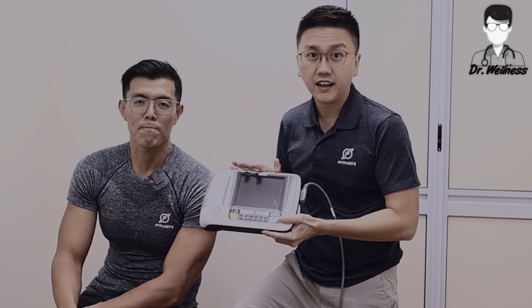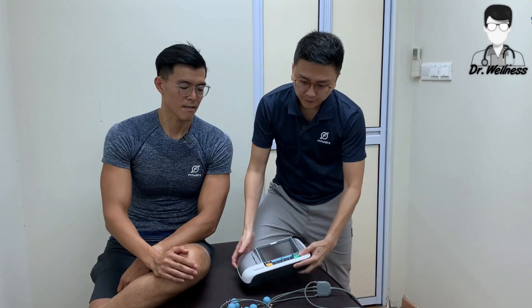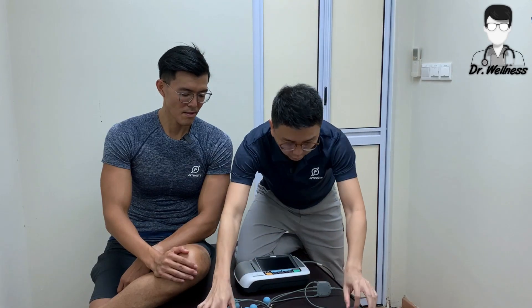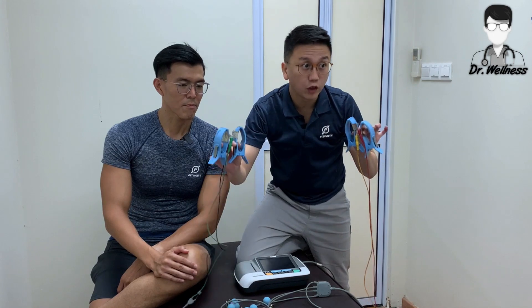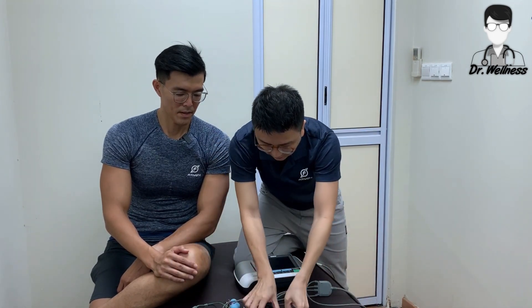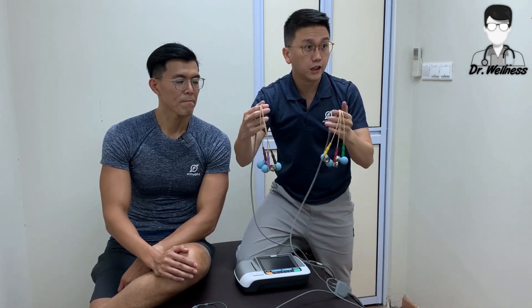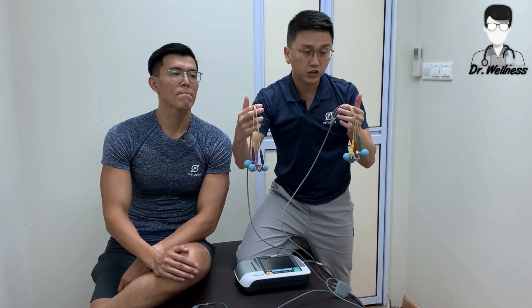Okay guys, welcome to the clinic. This is where we keep our ECG machine. As you can see, this is the ECG main machine. The main machine is actually hooked up to 10 electrodes, of which we have the four limb electrodes to the hands and the legs, and we have six more chest electrodes which are then connected to the body of the patient.